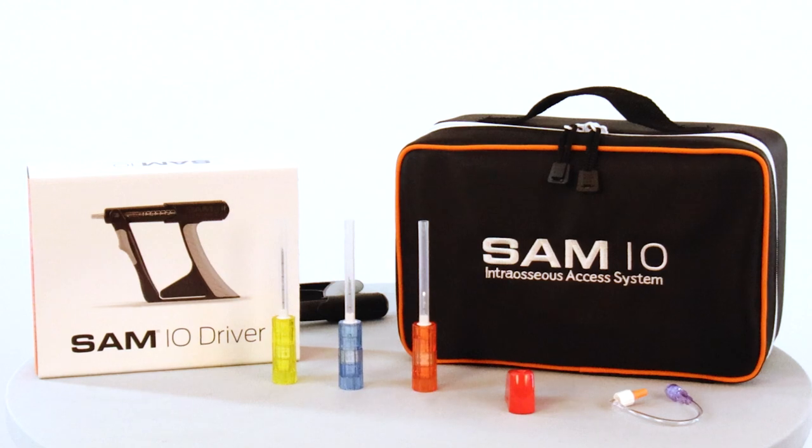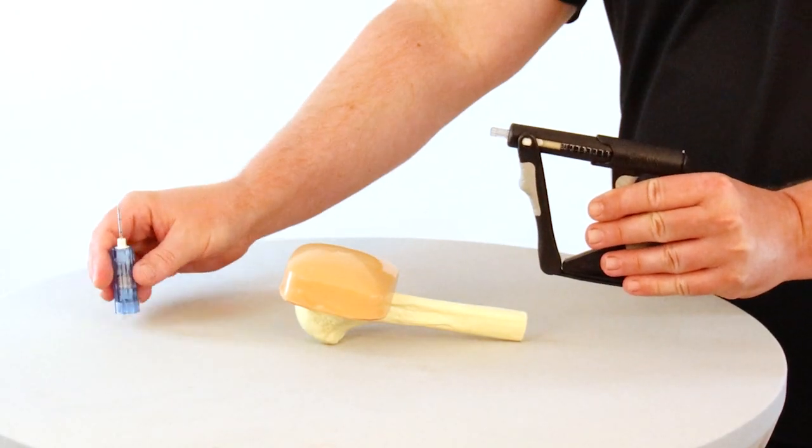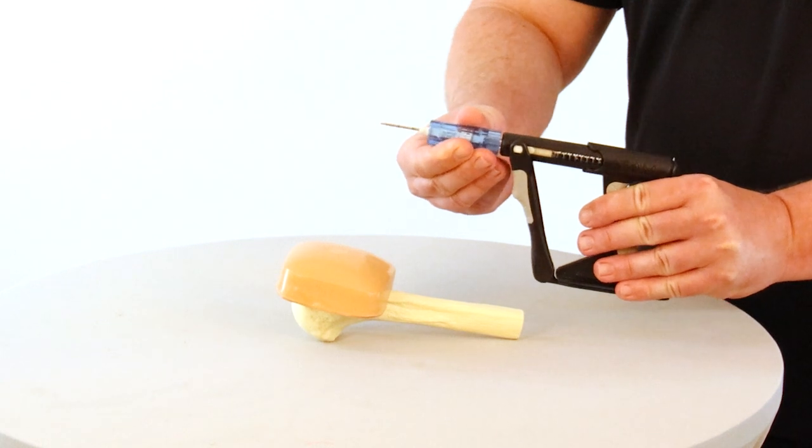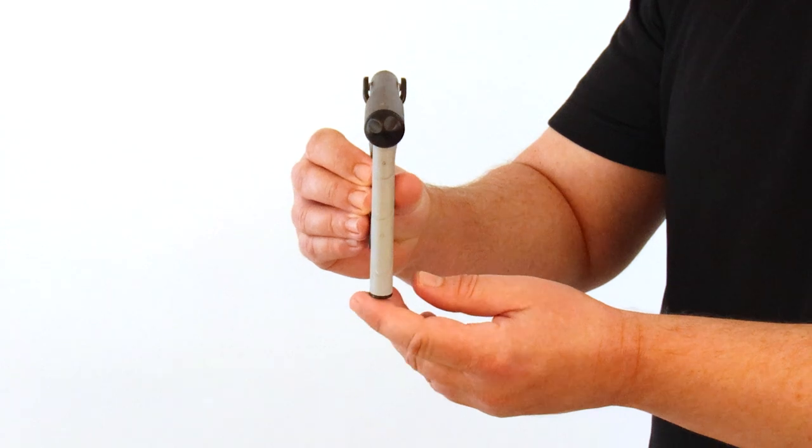The SAM I.O. consists of an innovated, ergonomically designed, manually operated driver allowing for quick application and tactile feel for needle placement. No battery power to rely on.